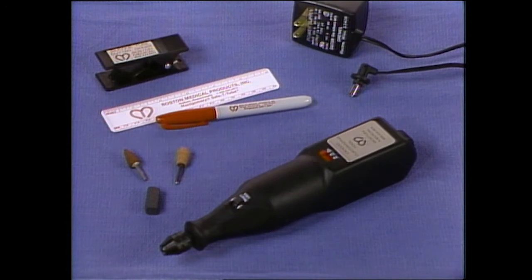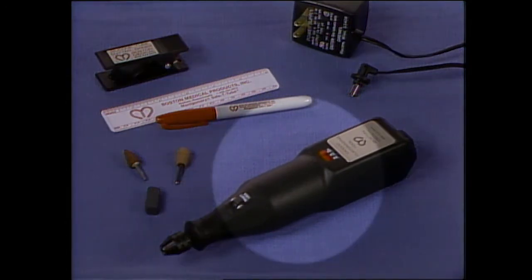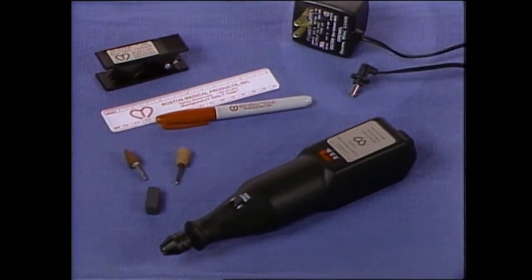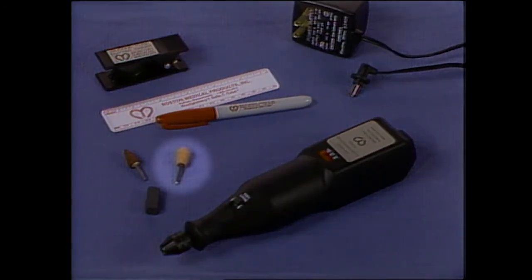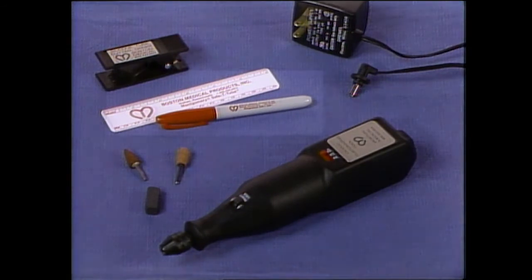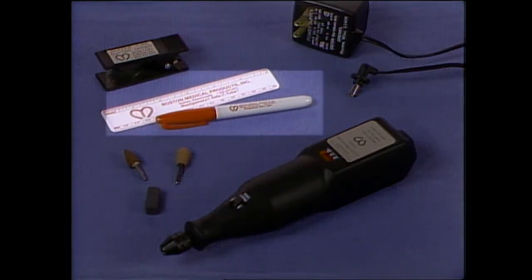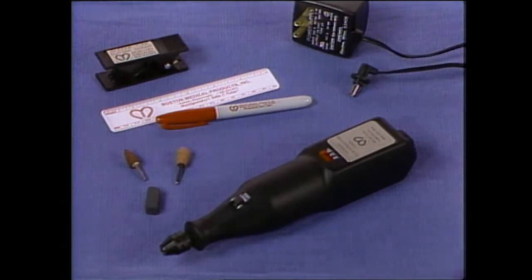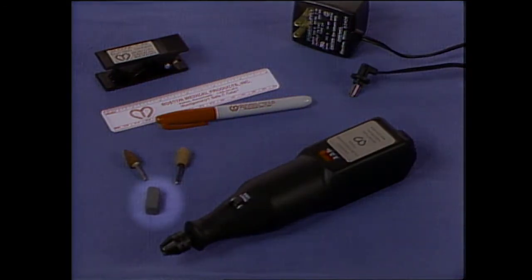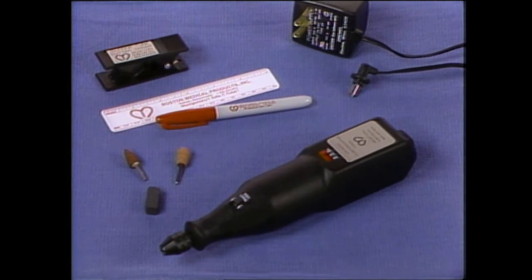The CK1000 customizing kit contains the following items: a cordless grinding tool with keyless chuck, a recharging unit for the grinding tool, a tube cutter, two types of grinding stones (one with a ball end and the other with a cone end), a six inch ruler for measuring the end or ends to be cut, a red marker, a dressing stone used for cleaning the grinding stones, and a convenient carrying case which also serves as a recharging housing.